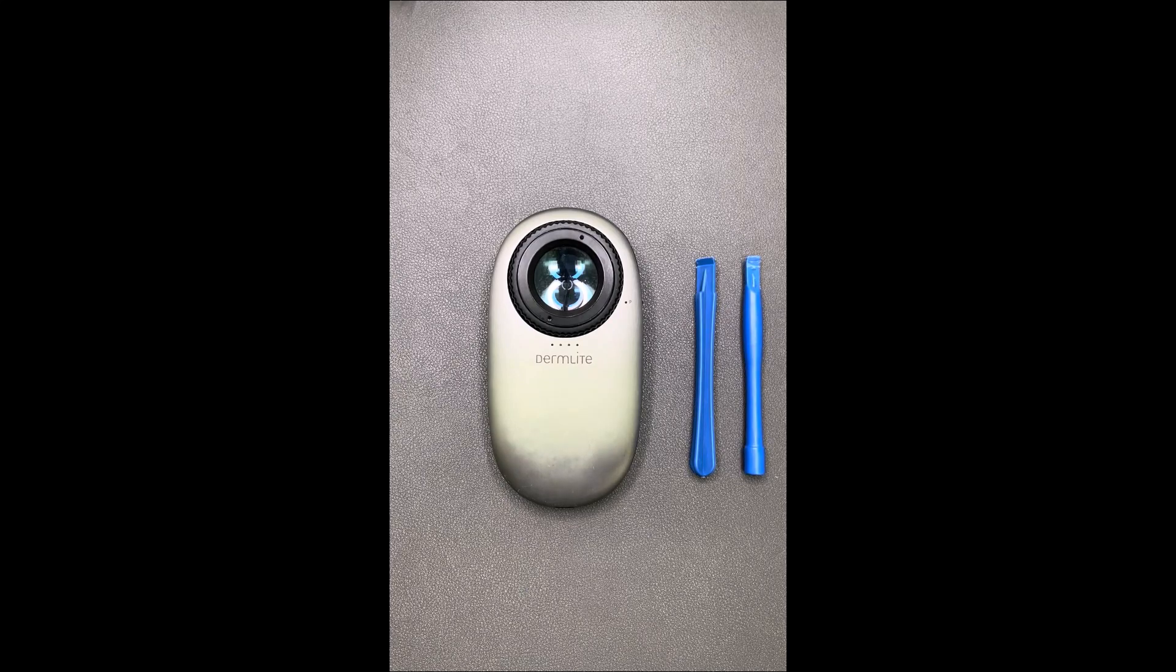This unit in particular is a DL200 Hybrid Silver, but this method will work for the other versions as well, which are the DL200 Hybrid Gold and the DL200HR.